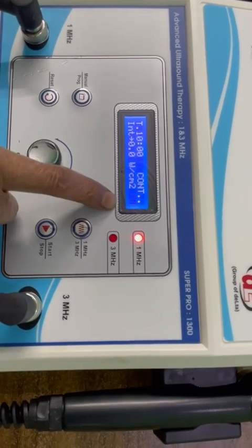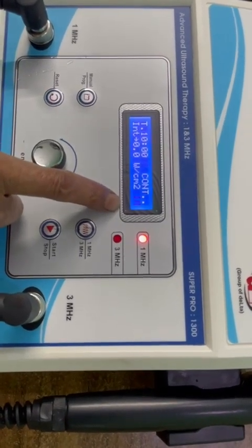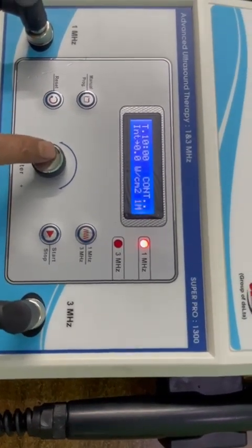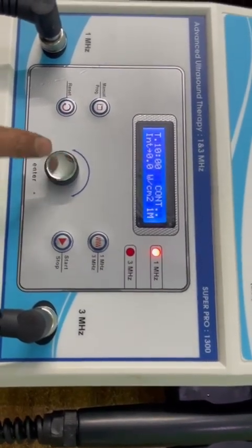Now 1 MHz is blinking. You can also change 3 MHz or 1 MHz. Now what we test first? 1 MHz. Press again, enter button.